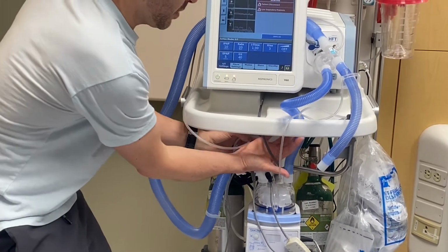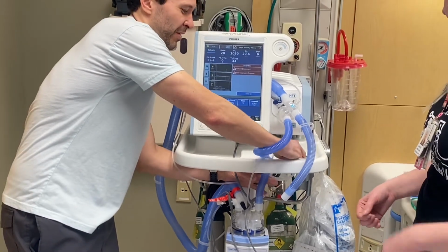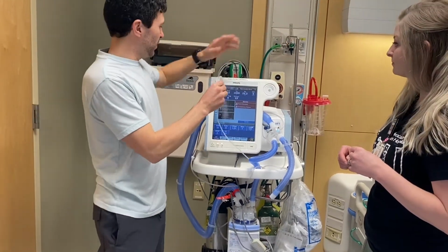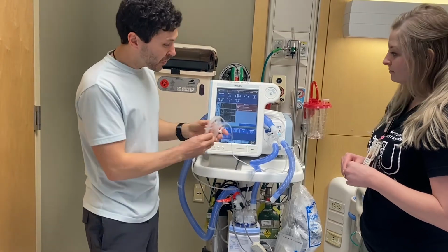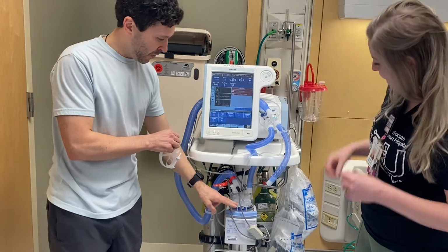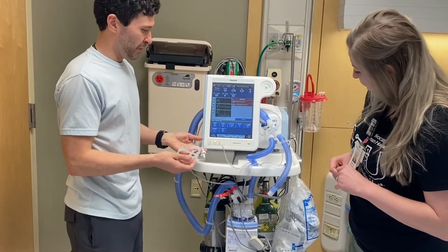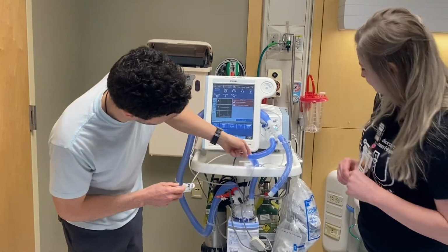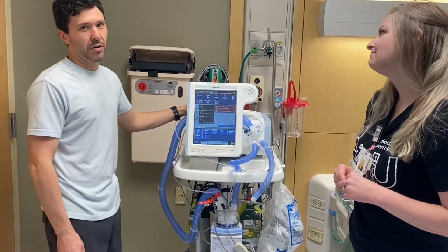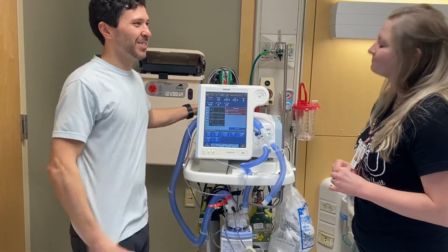We either run it up here, or we feed it through somewhere, and we don't always have the pole. Sometimes the poles aren't on these, and we lay the bags in the back. So this is where, if you're going to see the problem where there's water in the bag but no water in the actual chamber, it'll be on your V60. So definitely take a look. It gets kinked really easily back here, and if the water bag is just on the back of the machine, gravity is not our friend. So sometimes if you see us steal your IV pole and we have water on it, that's why we do that. Makes sense.